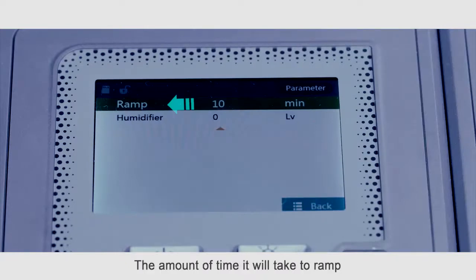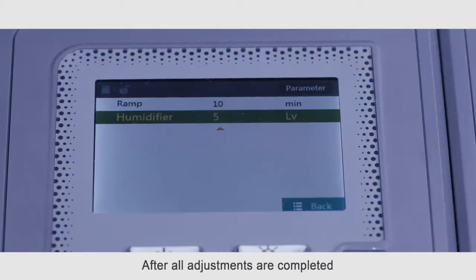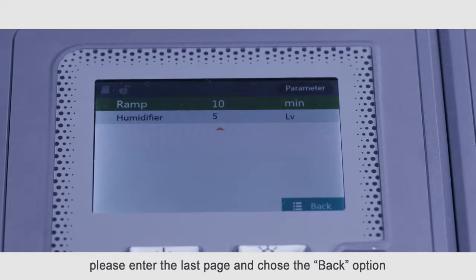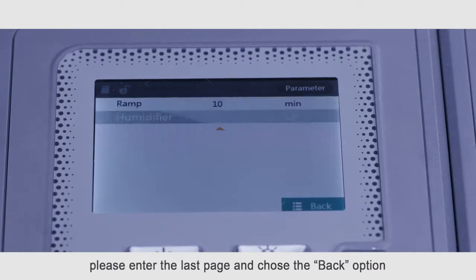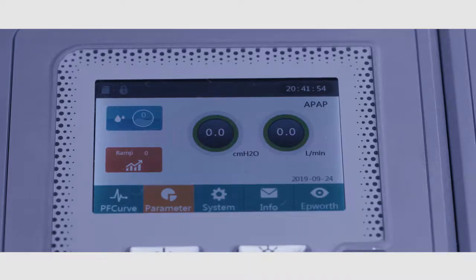Ramp. The amount of time it will take to ramp to a regulating inspiration pressure, it can be set from 0 to 60 minutes. The larger the value, the longer the ramp time. After all adjustments are completed, please enter the last page and choose the back option on the right corner of the interface to exit parameter setting.